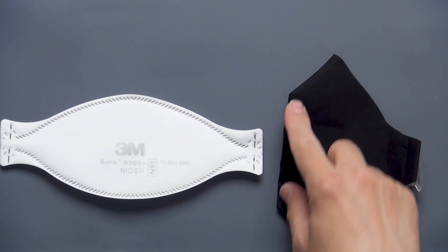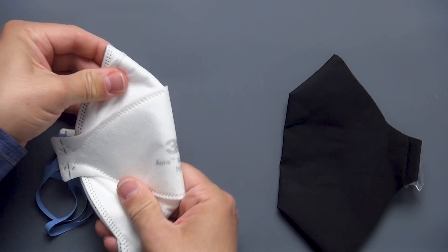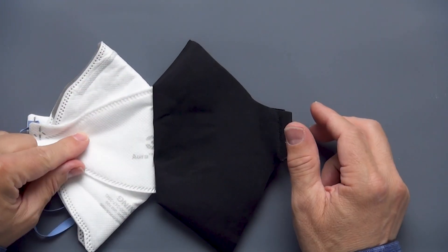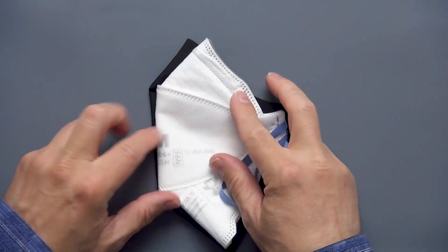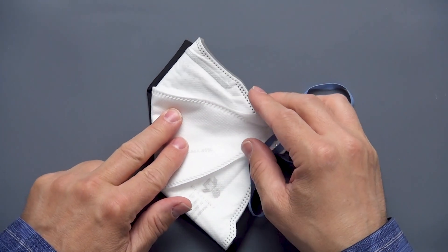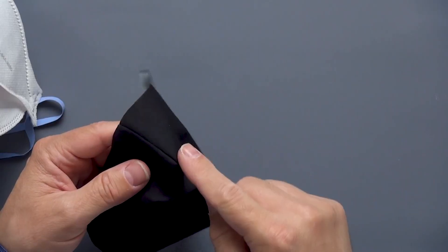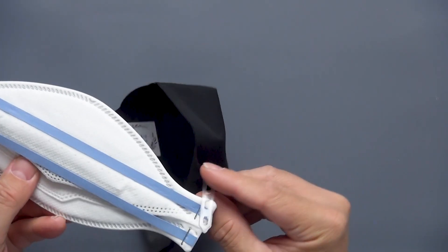Let's take a closer look at the cover and a 3M Aura. That seems odd — this is a tri-fold and this is like a vertical bifold. Why would they do a vertical bifold? Well, as it turns out, a 3M Aura tri-fold, when you actually fold it in half, this is the profile you get. And you'll see that this cover is cut to fit a 3M Aura in spite of being a bifold design. By doing that, they don't have to use three pieces of fabric. It's less sewing altogether. They just have a dart here and a dart here on the bottom — that makes it simpler. One innovative piece of design is that you don't need separate head straps; it just clips onto the mask.